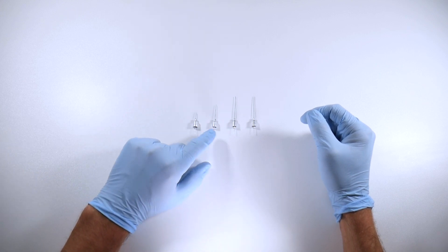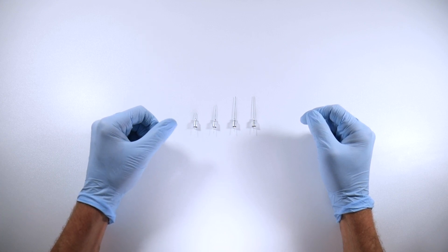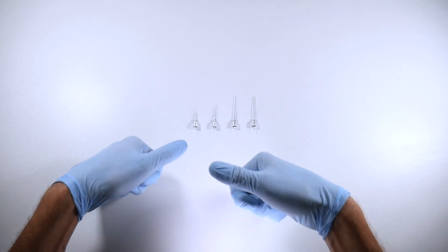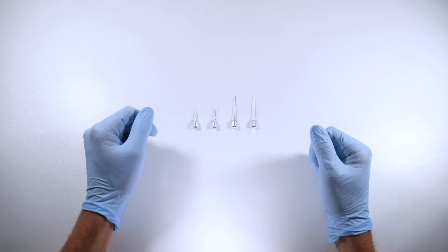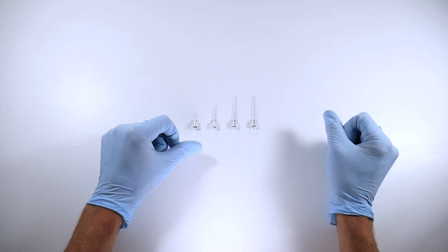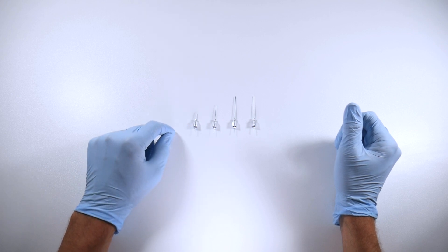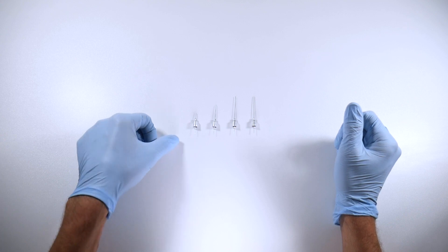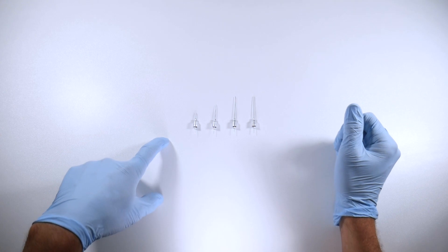If you're using a really long needle, try it sometime - try a long needle to do a PDL injection, it's almost impossible. The short needle you can get away with it, certainly if you put some bends in the needle or place your thumb over top of the hub. But a lot of times the needle is going to bend and displace out from the sulcus, and you're going to get anesthetic leaking out from around the tooth. So the short needle, being shorter, is not as bendy - it has more rigidity to it, allowing you to push down more to get a more successful PDL injection.